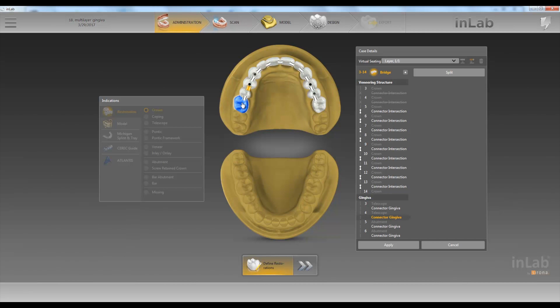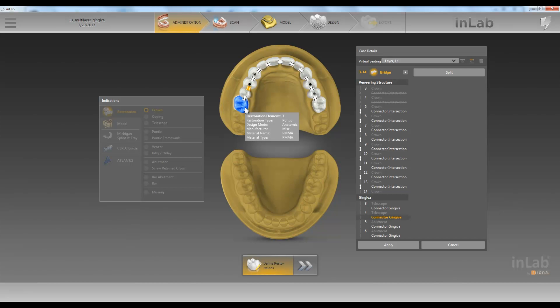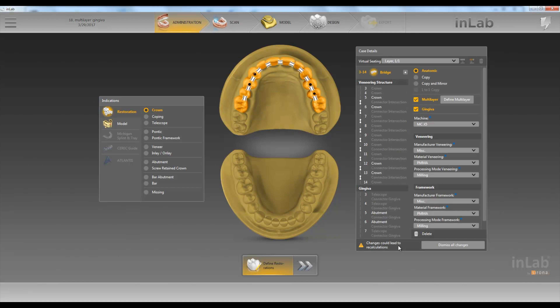Let's say we don't want that — we want all these to be singles instead of a bridge on top. Then we come over here to define multi-layer. We have all these connectors right here. This is saying this is all one bridge, but let's say we want these all to be single units on the top.